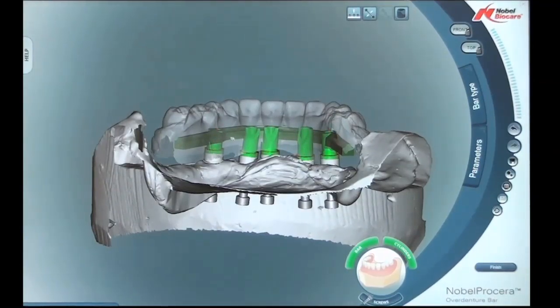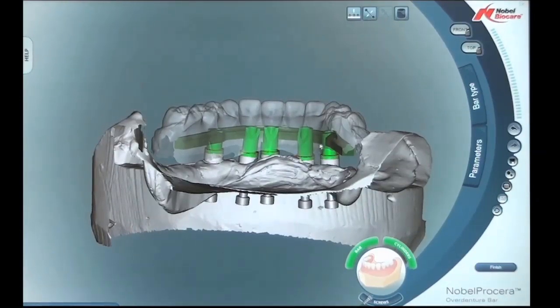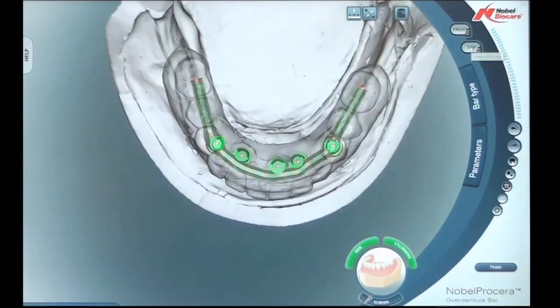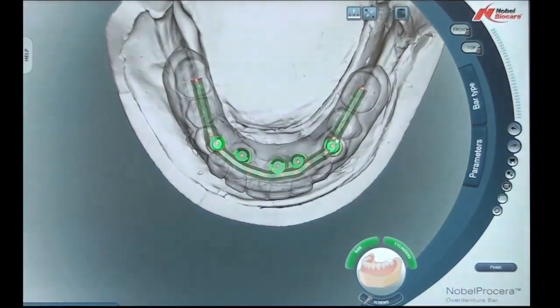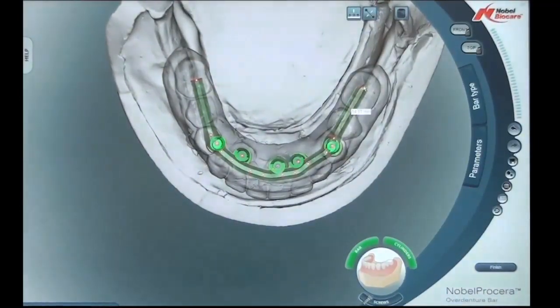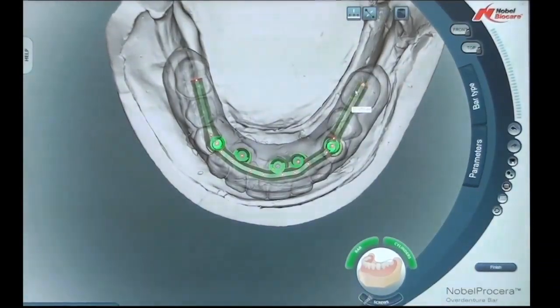We can unclick the bar and lose all the segments on the bar. Clicking back on the bar, we're able to look at the distal cantilever segment and move the bar left, right, up, or down to any position needed. This is done more simply by going to the top view and looking straight down. By clicking at the very end of the bar with the white dot, we're able to make the bar longer or shorter and also control it to the left or right, or make the bar more lingual or more buccal.